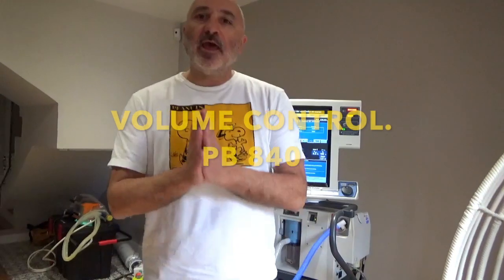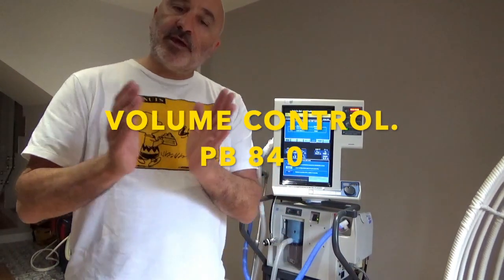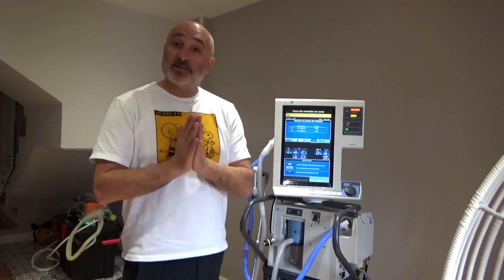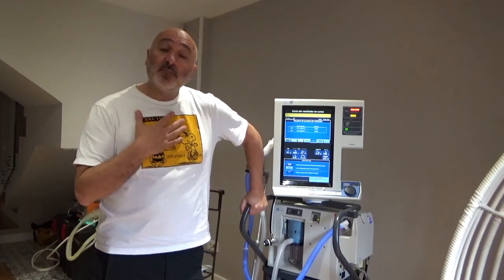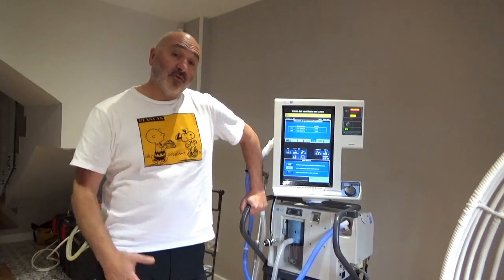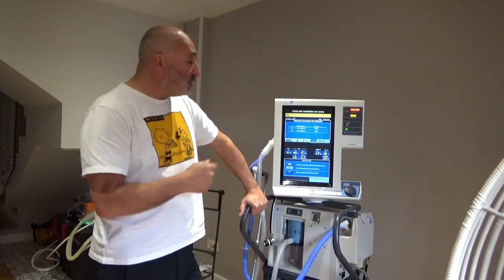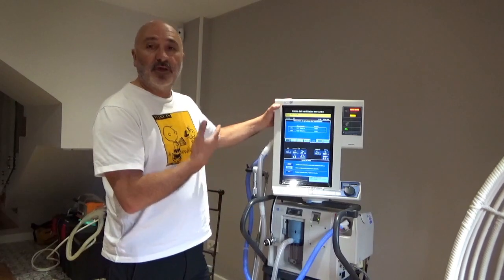Hello, homemates. Good afternoon and welcome again to the mechanical ventilation course for dummies. Thank you very much for your attention. My name is Alberto Medina. I am a pediatric consultant in a pediatric intensive care unit in the north of Spain, and today I would like to overview the settings in this particular ventilator.